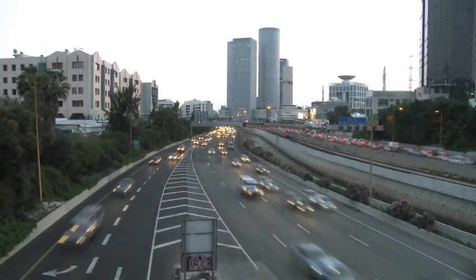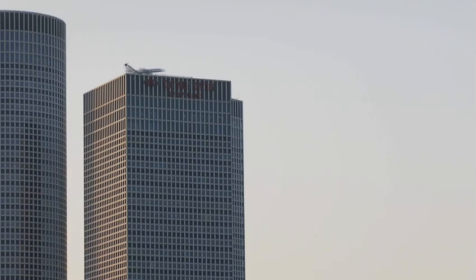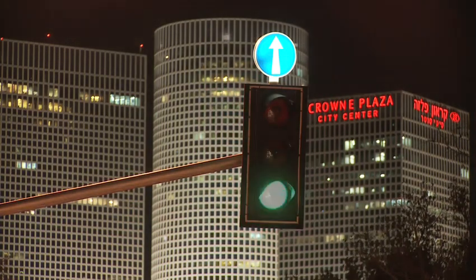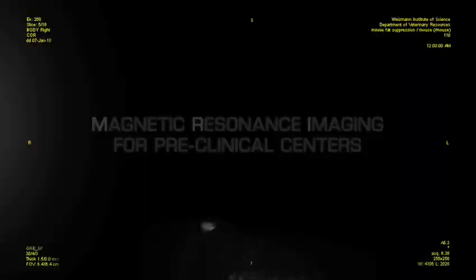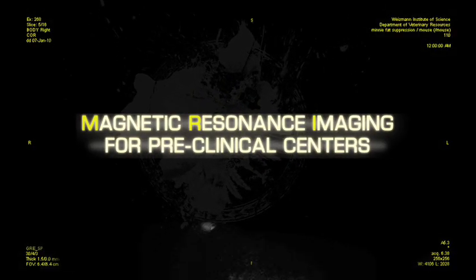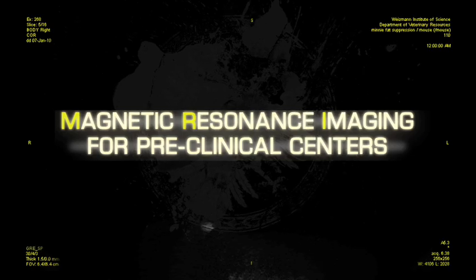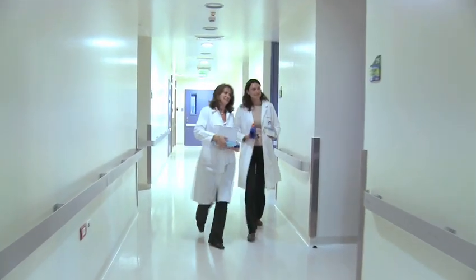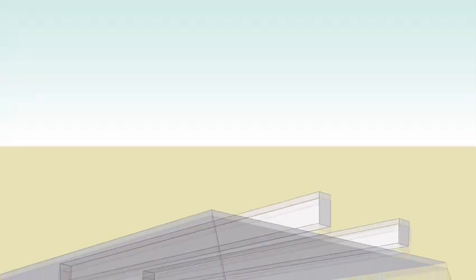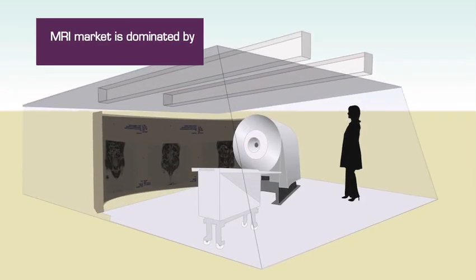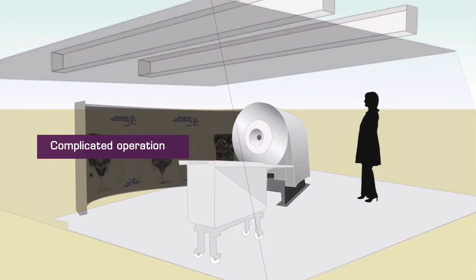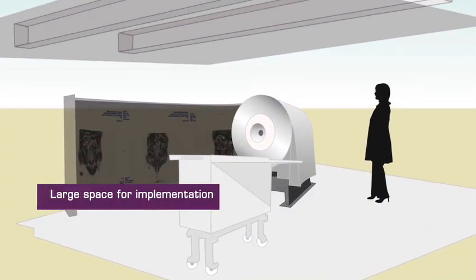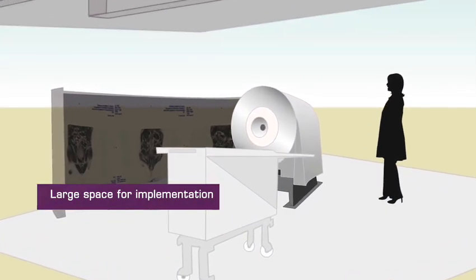Our modern world is dynamic and constantly changing. In this challenging environment, new technologies pave the way for smaller, more advanced, and friendlier systems. MRI, magnetic resonance imaging, is a fundamental tool for laboratories and preclinical research centers. Yet today, the MRI market is dominated by expensive units with high cost of ownership, complicated operating methodologies, and considerably large space for implementation.